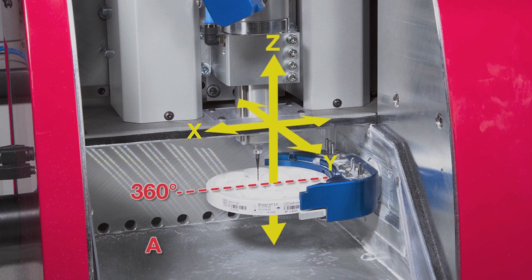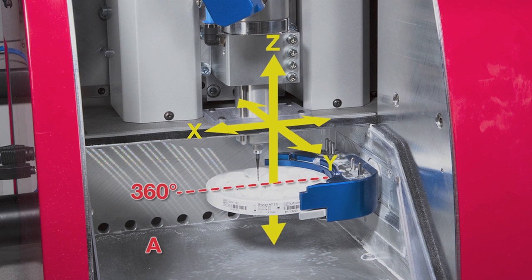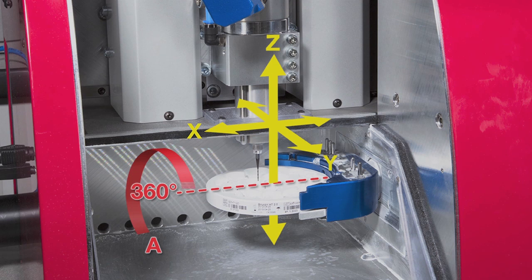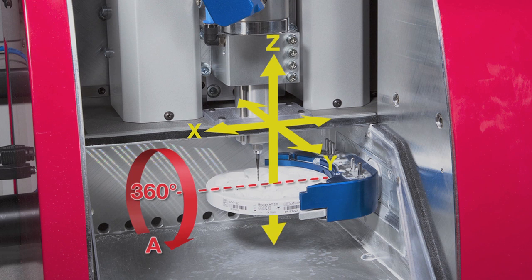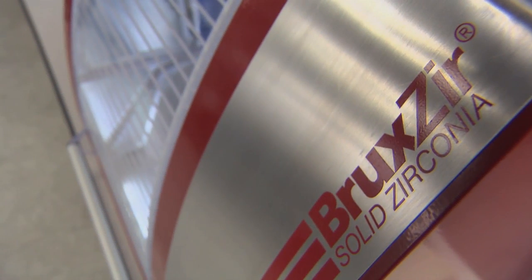The addition of a rotational axis, labelled A, allows the milling disc to be flipped so the underside of the prosthesis can be sculpted. This is a 4-axis system.